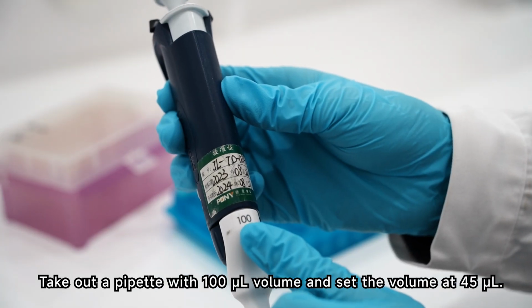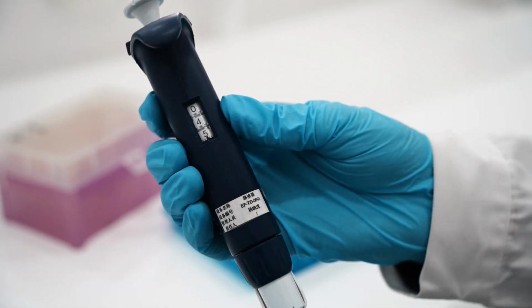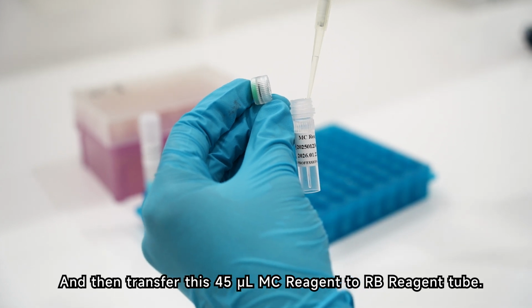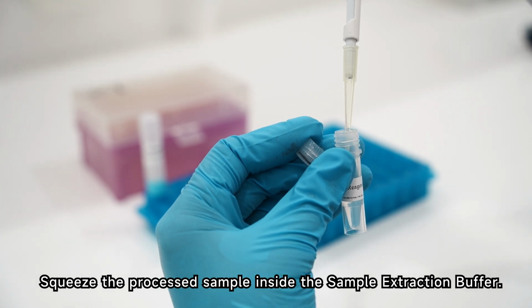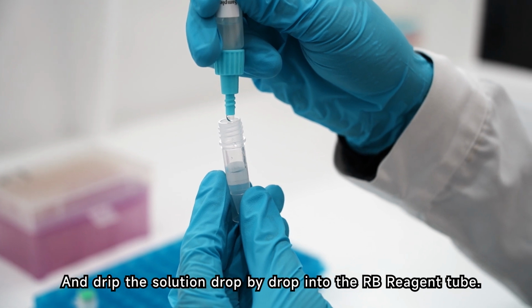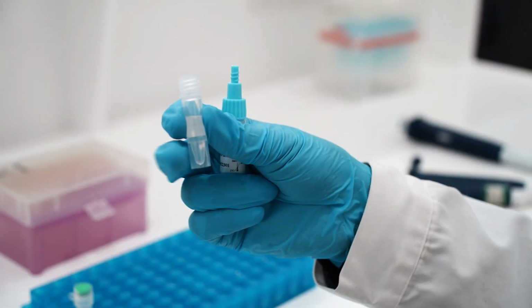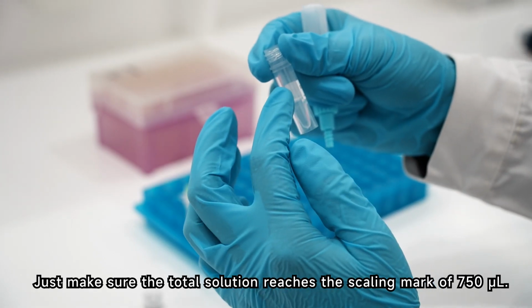Take out a pipette with 100 µl volume and set the volume at 45 µl. And then transfer this 45 µl MC reagent to the RB reagent tube. Squeeze the processed sample inside the sample extraction buffer and drip the solution drop by drop into the RB reagent tube. Just make sure the total solution reaches the scaling mark of 750 µl.